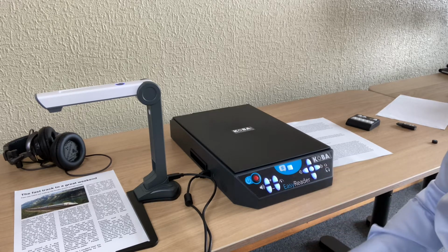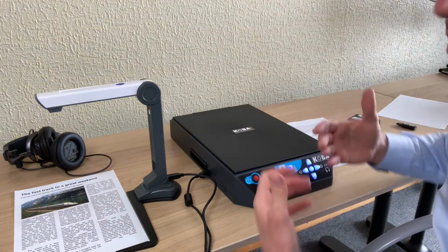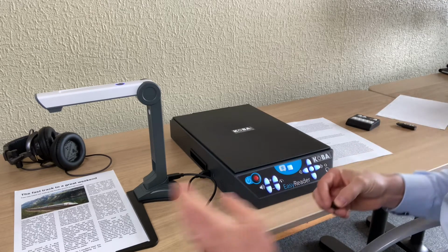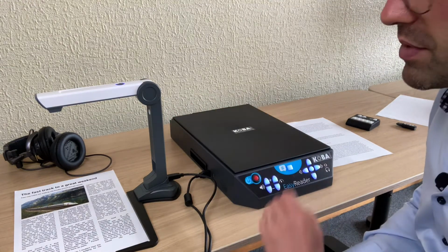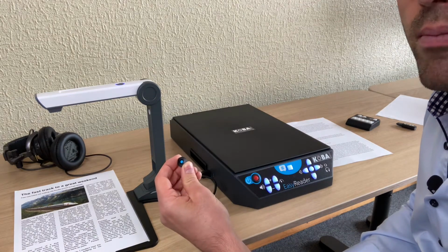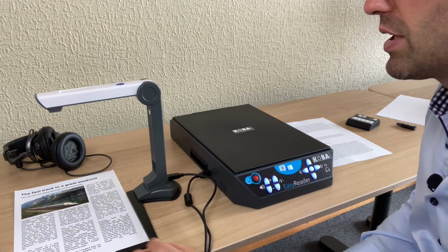I'll stop over here. So you see the speed is improved, but that's because I don't have the scanning, of course. But pay attention with the quality, of course. Here we have a good page, good quality of page, large letter characters. So the advantage of the camera is that you also could use a navigation button. Over here I have a blue button, and I can put it here, for example, in a sort of text.